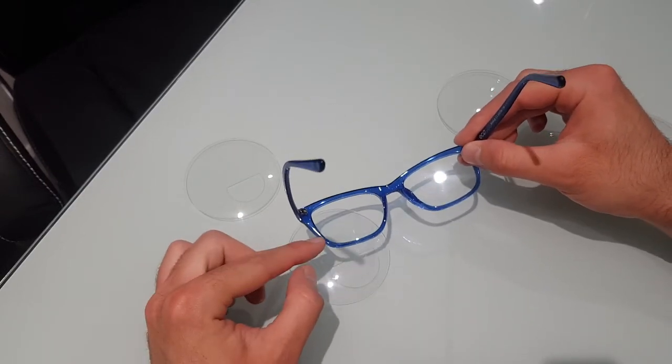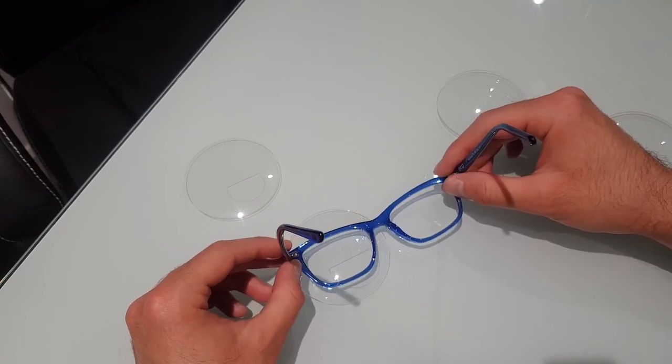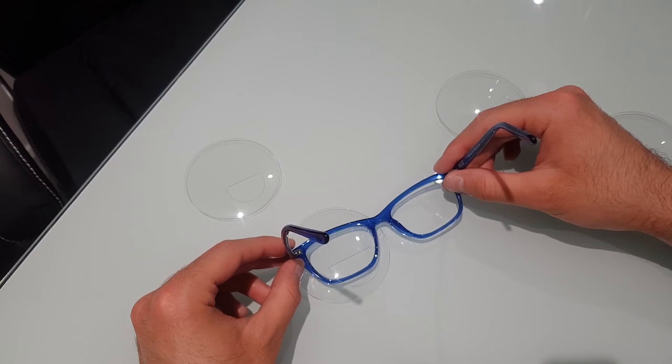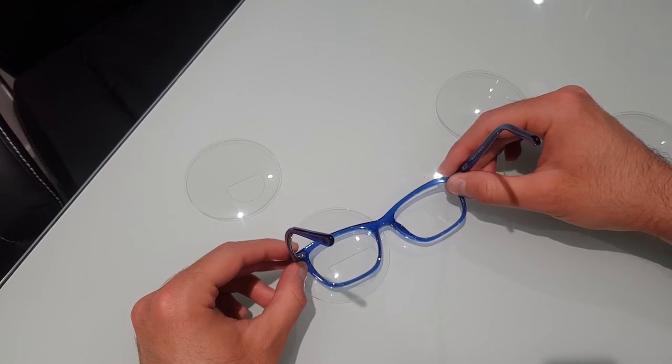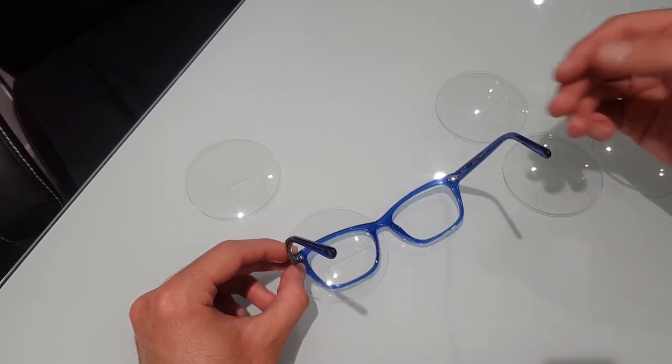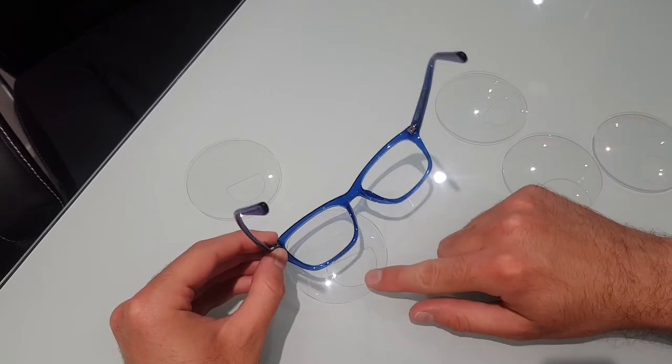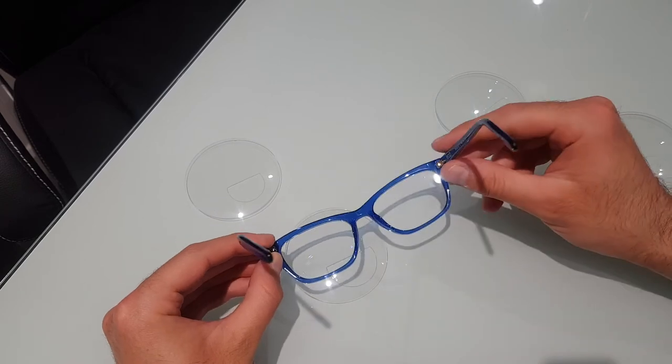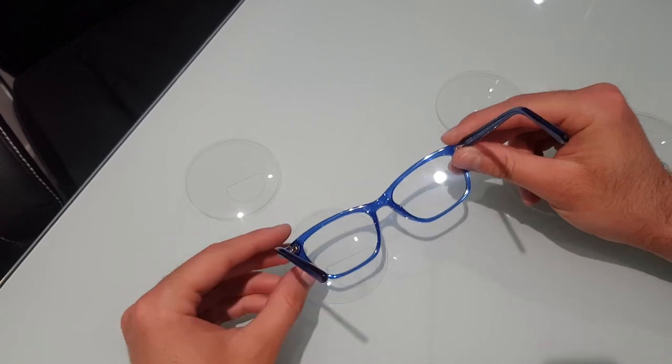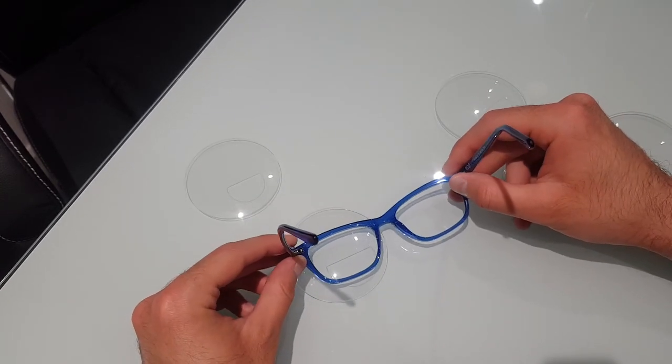You can't really pick where you have this. You could say to me or your optician, I currently have bifocals here, I want a little bit more reading area. And what we basically do is we'd see how high we can bring that segment to give you more reading area without it coming into an issue of your distance vision. Because what you don't want to do is have a bigger reading area which would be fantastic for reading, but then cause problems when you're doing things like driving, walking up and down steps or curbs.